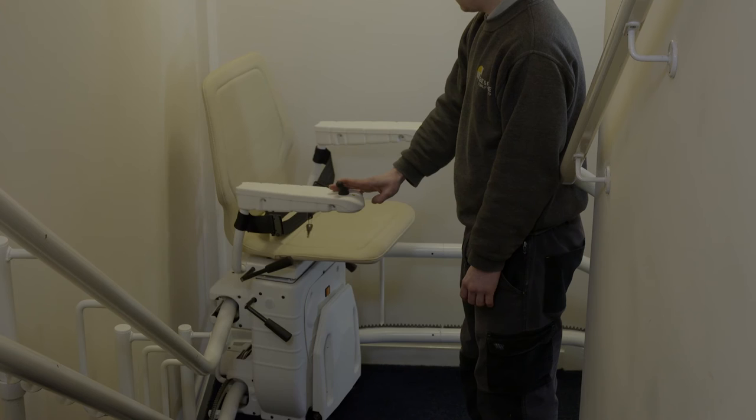If the stairlift has an extra mid-charging point, move the stairlift to this point, then stop.